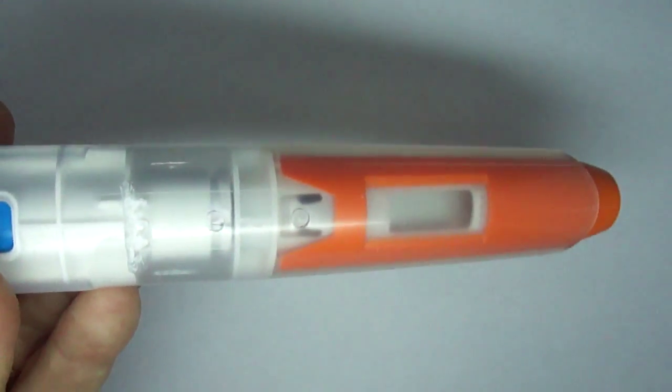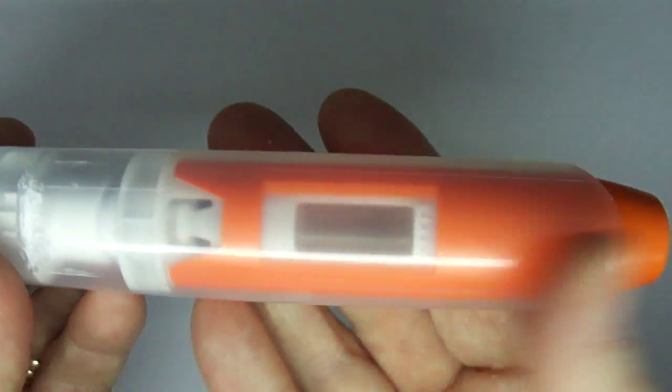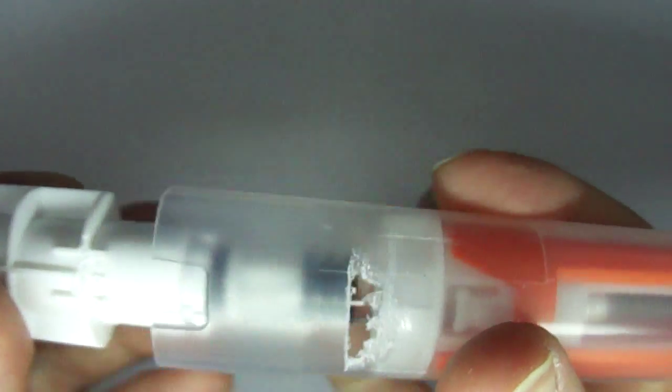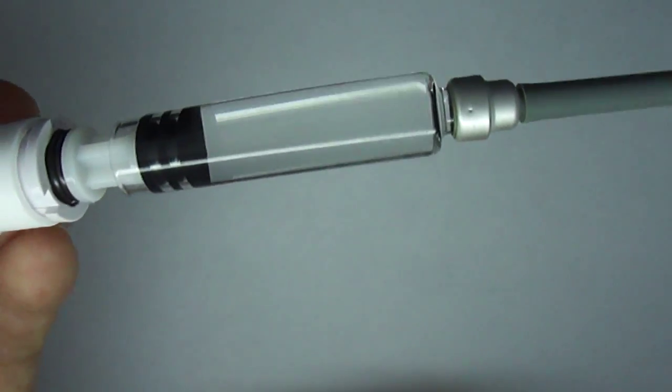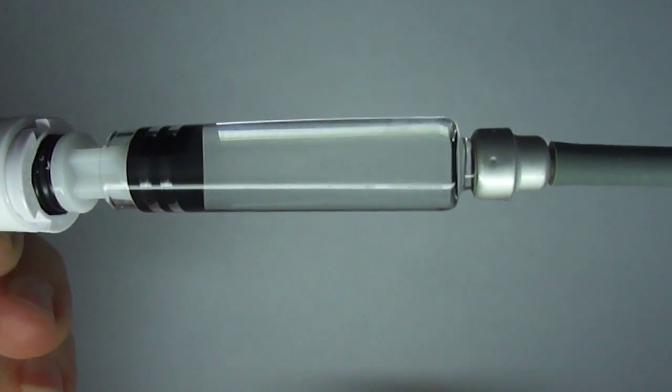And this is the same device except that I have removed a little bit of the safety catches that prevent it from being disassembled. And now I can pull out the vial. And you can see that this glass vial is indeed very clear and has no particulate matter.